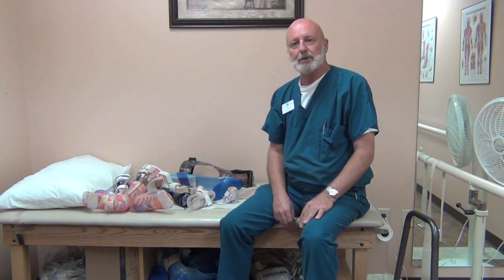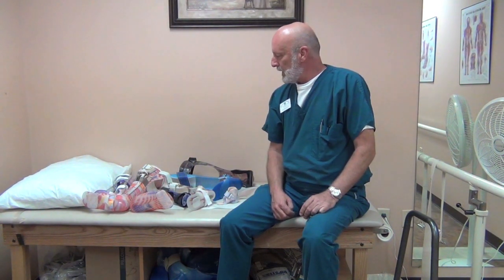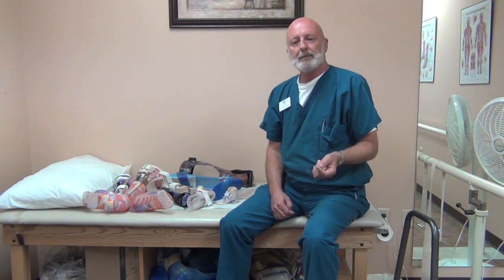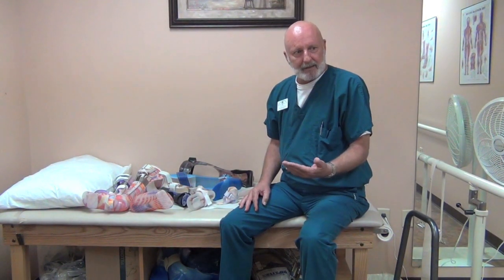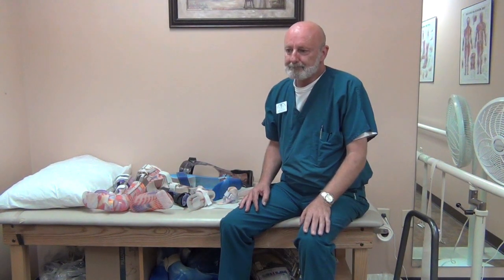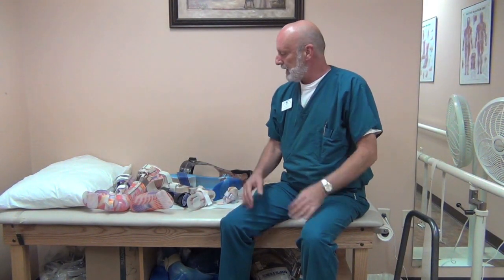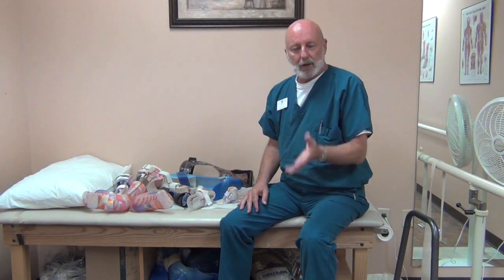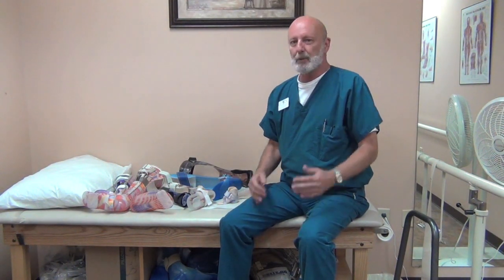We do use other orthoses and we'll touch on those a little bit. An orthosis is an orthopedic brace, typically custom made. With spina bifida, what we're doing is augmenting weak musculature based on the patient's deficits — paralysis affecting muscle groups based on the level of the lesion, or where in the spine the nerves are affected. Typically we're talking about lower back or lumbar level lesions. Once you get to lesions in the thoracic area, ambulation becomes much more of an issue and requires much more bracing — we're not going to go into those today.